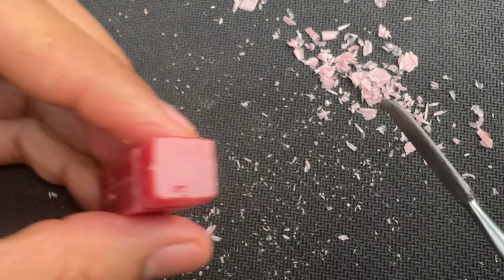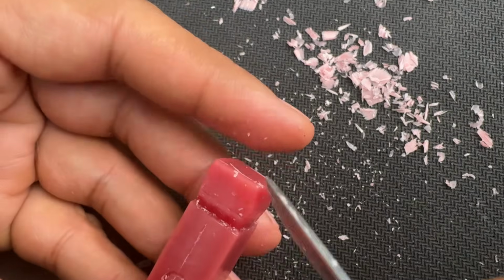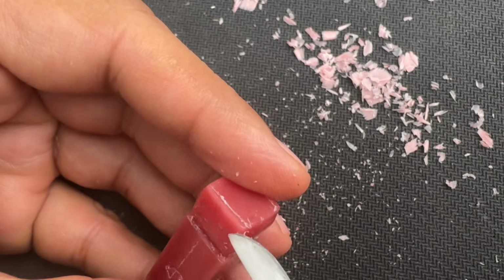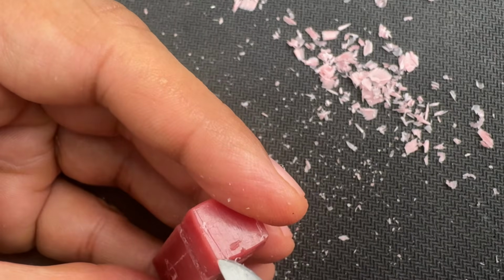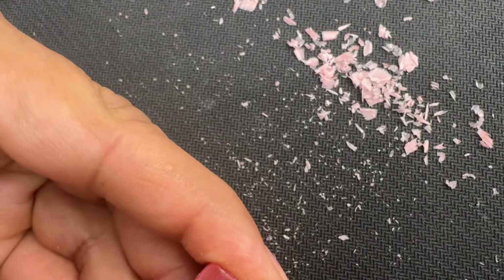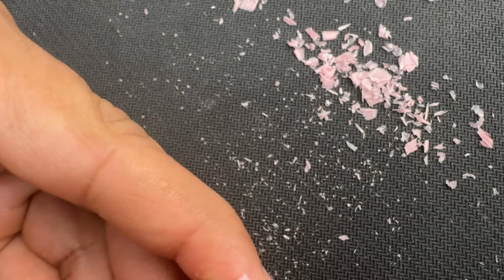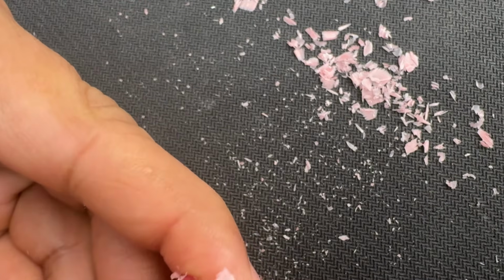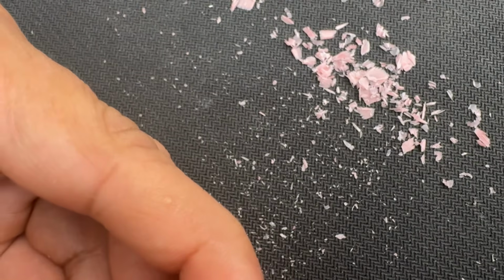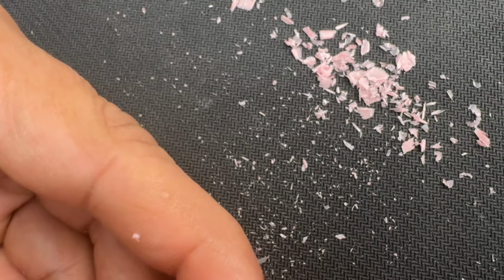Now, keeping the crest of curvature in place, make sure you don't change that too much, but at the same time we need to remove the wax from the lines we have drawn here. While doing that, make sure you don't spoil or damage the crest of curvature. It has to be maintained throughout. So remove layer by layer.